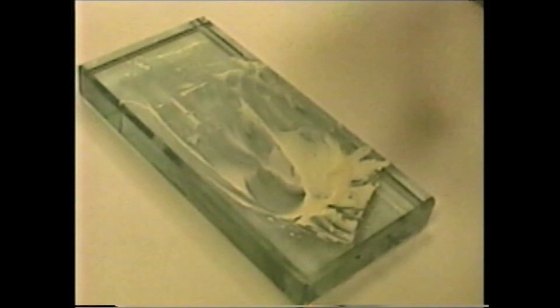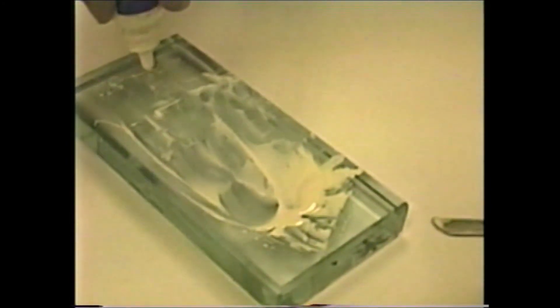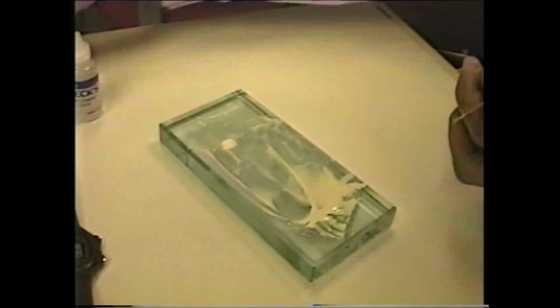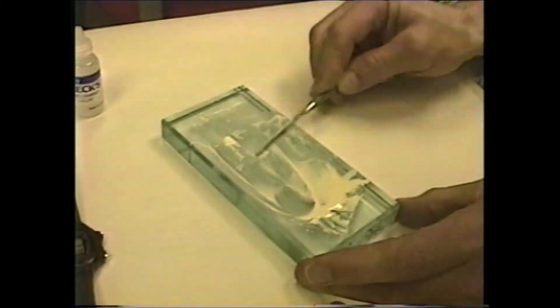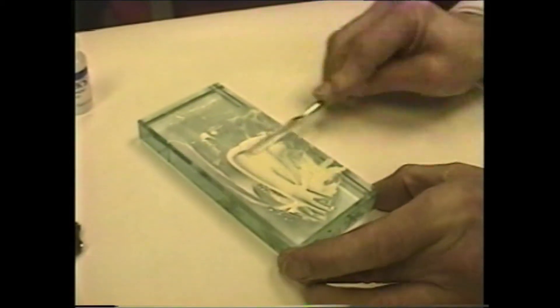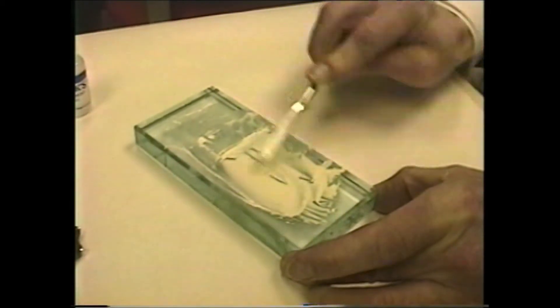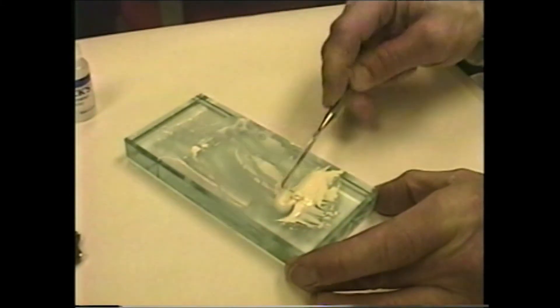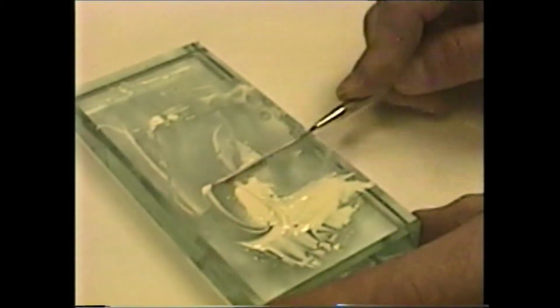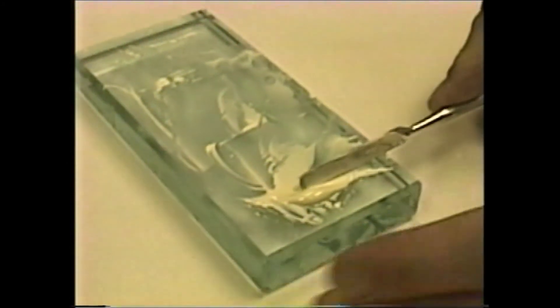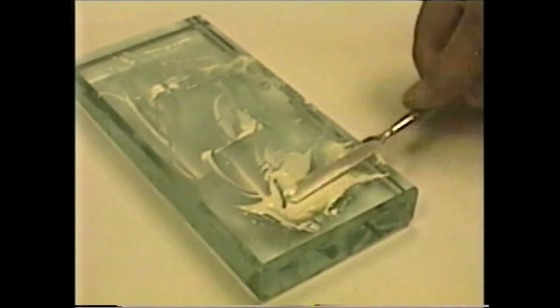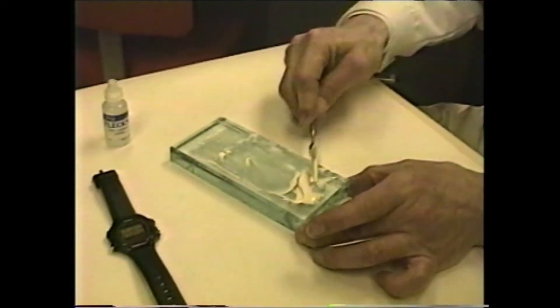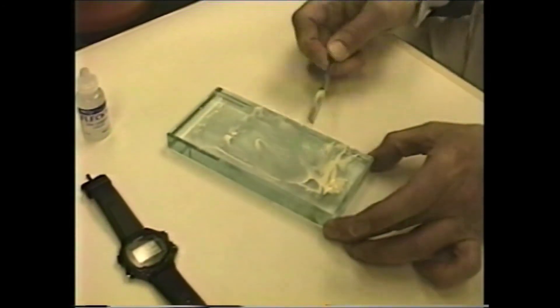What one can do is add a tiny bit of powder over in the corner here and incorporate that. That should render the proper viscosity for a one to two centimeter mix. About like so. That is pretty much ideal. I'll hold this to the side again so that you can see as I lift it. That pretty much completes the mixing technique for zinc phosphate cement.